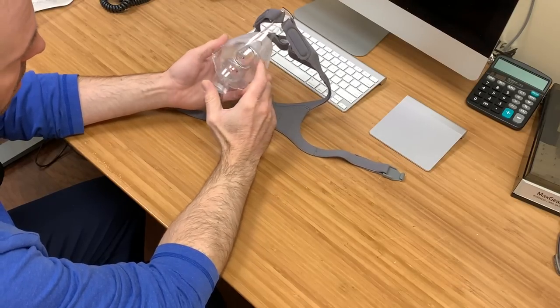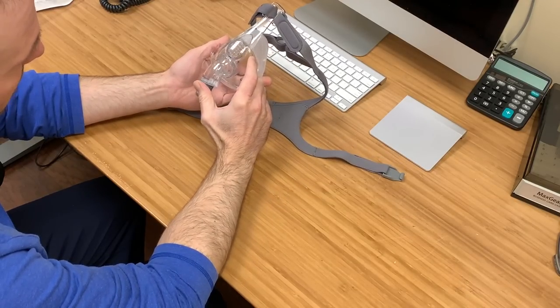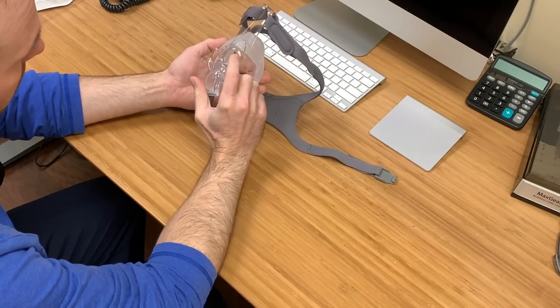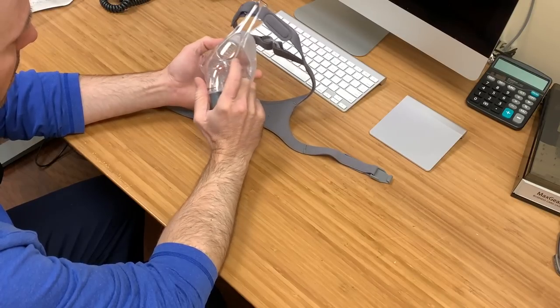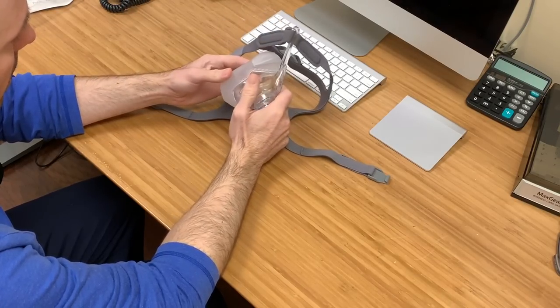The patients here, myself, I really like this mask. It's definitely my top five and I'll tell you why.